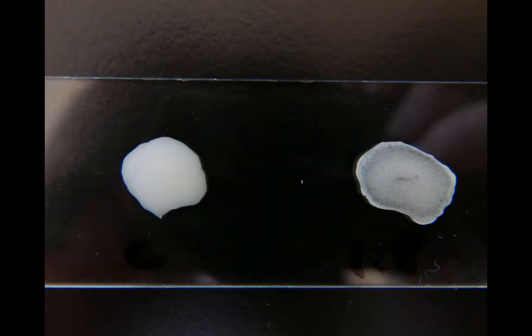If you examine the samples closely you will see a striking difference if agglutination has occurred. The sample in this photograph on the left is the control that is just PBS was used. The sample on the right had the latex beads and also the antibody. And you can clearly see a clumping of the beads as the antibody has cross linked them.